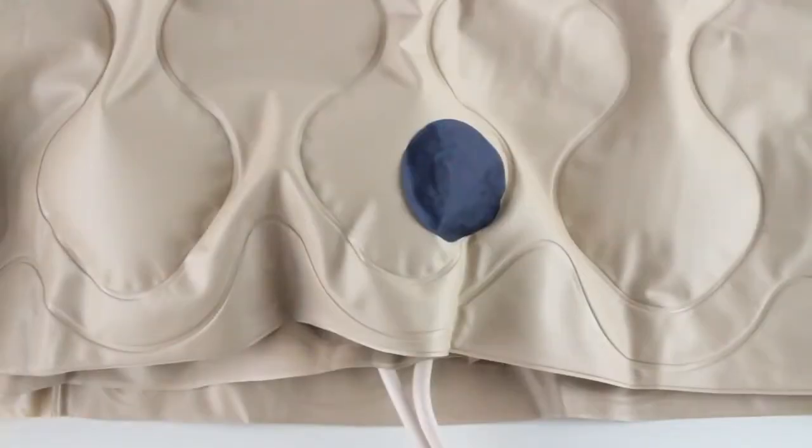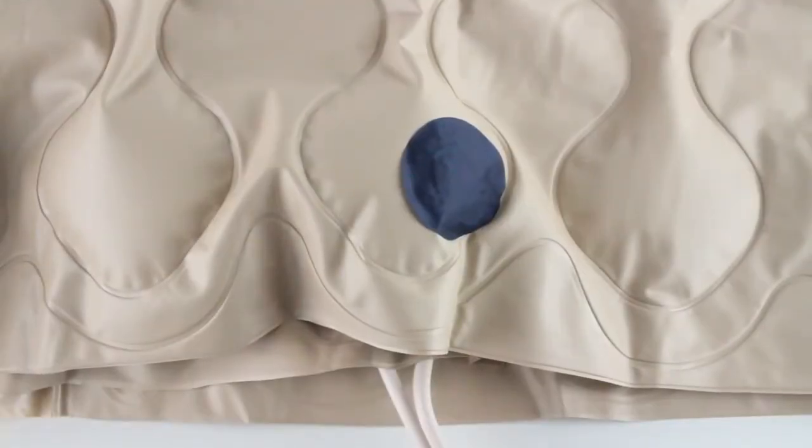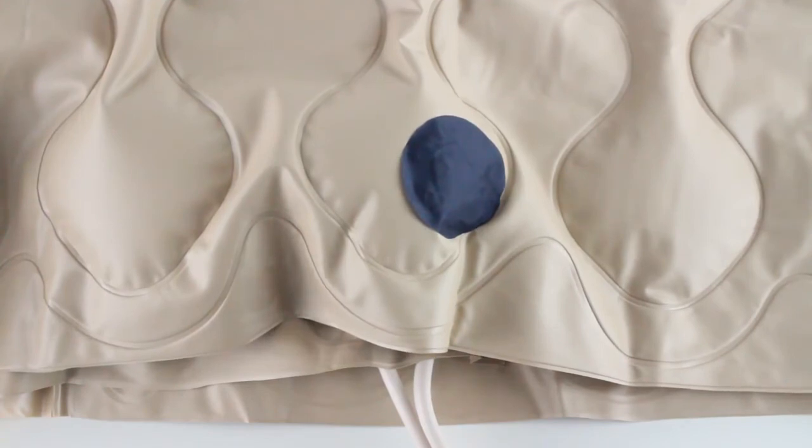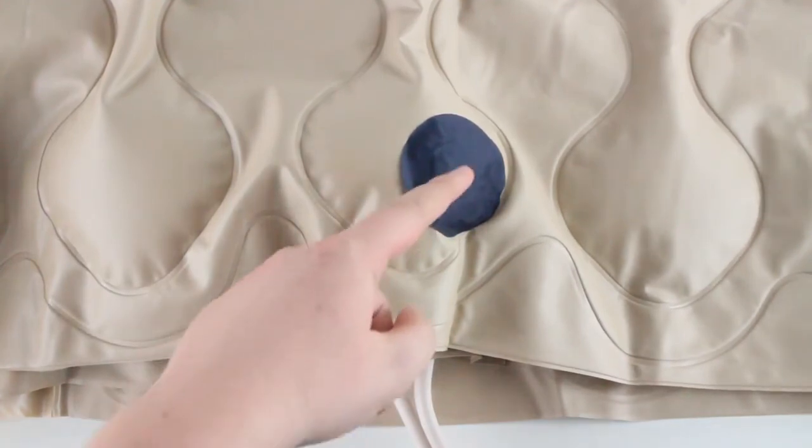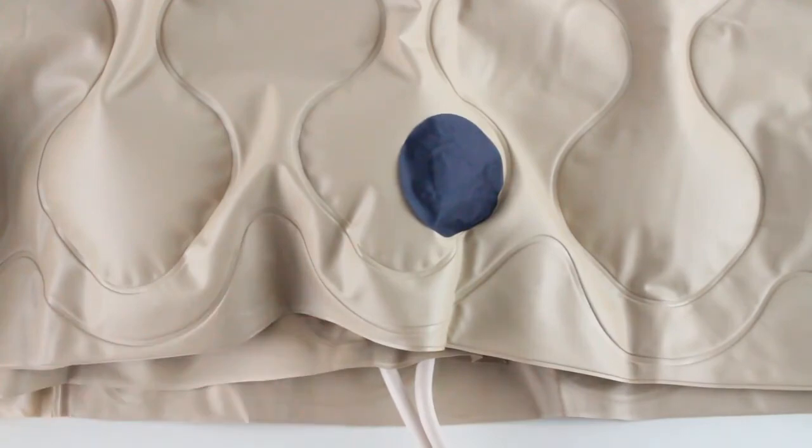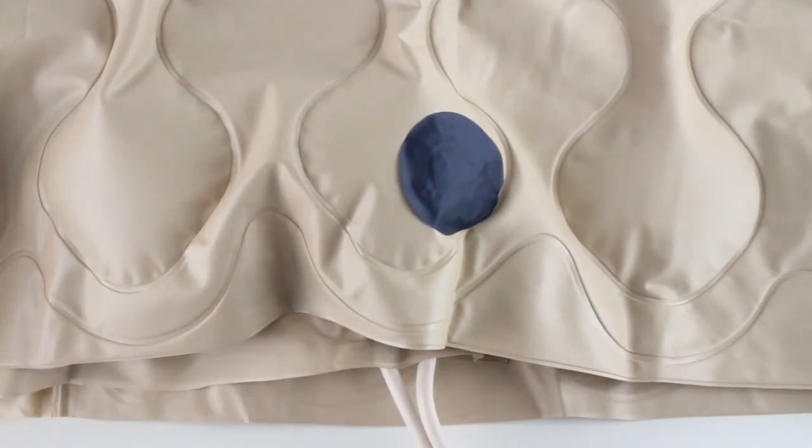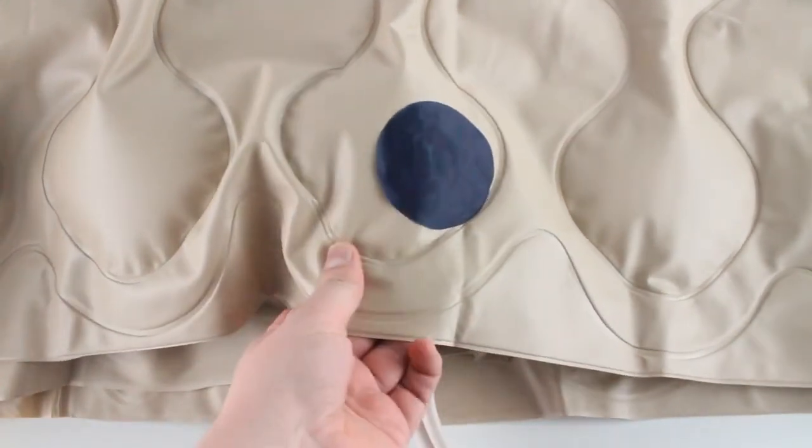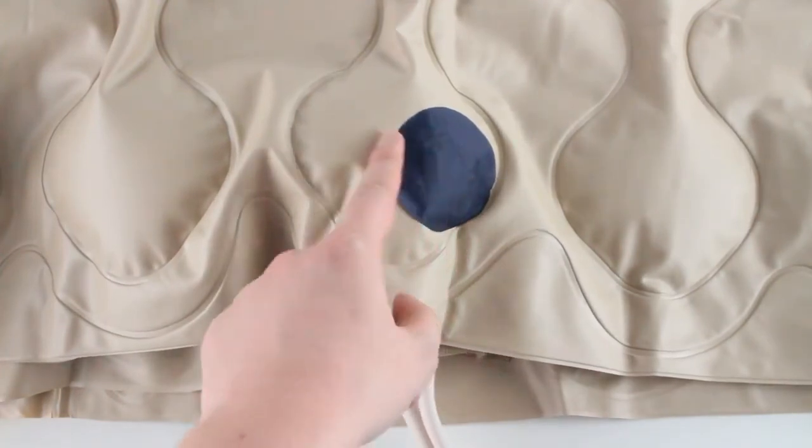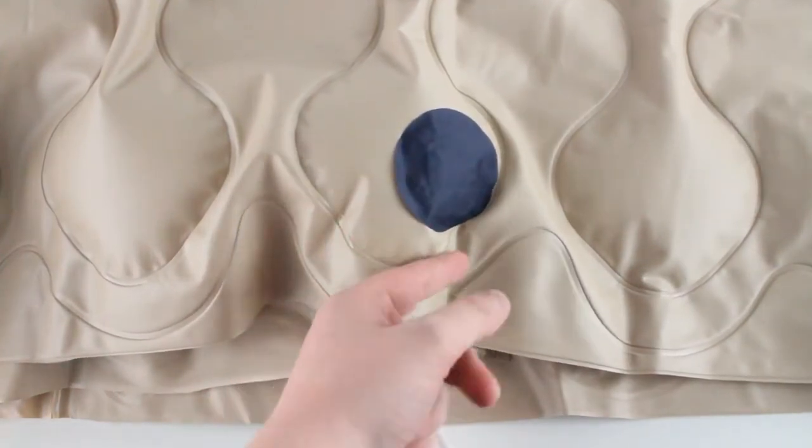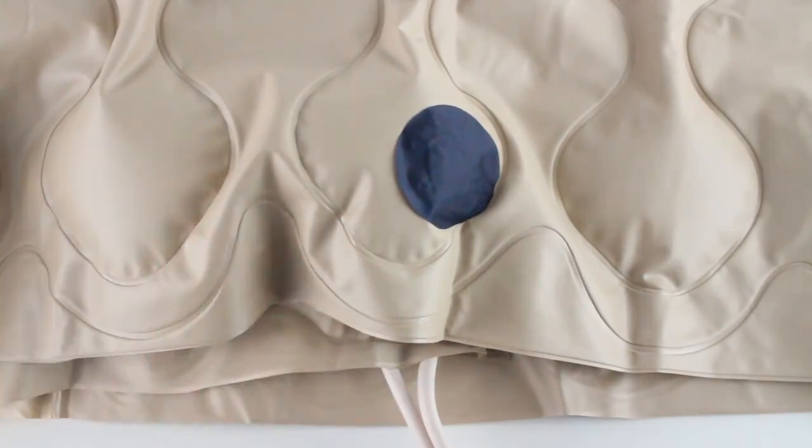Okay, so it's been a few hours since we applied a little more glue to the patch. As you can see, we're reinflating it. The pad is still folded up as we had it before, but there's air flowing through the chambers. The patch isn't bubbling, there's no movement from the edges here. Everything is inflating just fine, so you're all set to go.